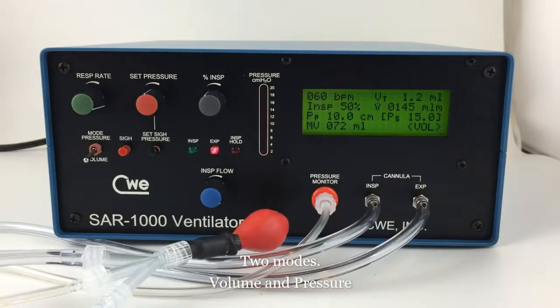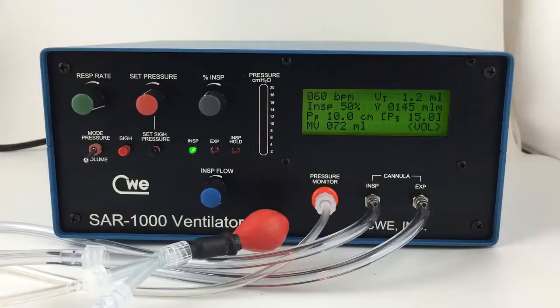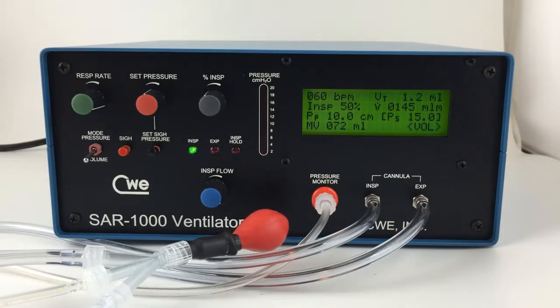The SAR 1000 has two modes of operation: pressure mode and volume mode. We'll begin with volume mode. A few important settings need to be determined when using volume mode. The approximate respiration rate and tidal volume are mainly dependent on body weight. A chart containing tidal volume and respiration rate versus body weight is found in the manual.